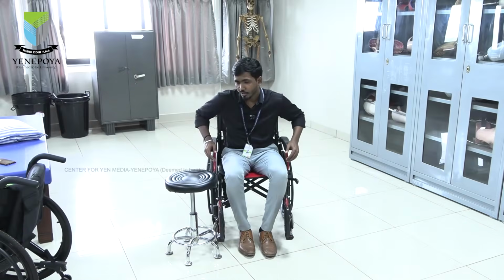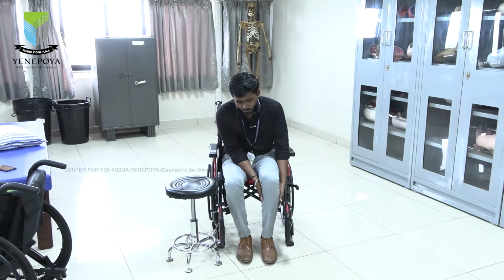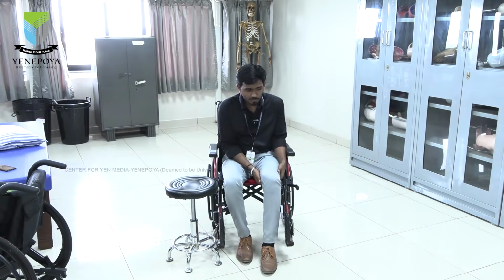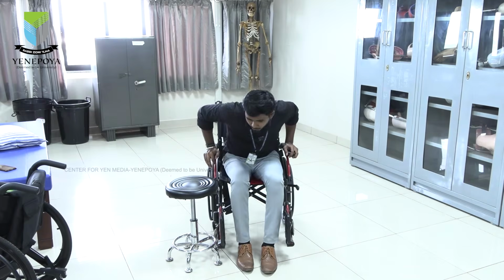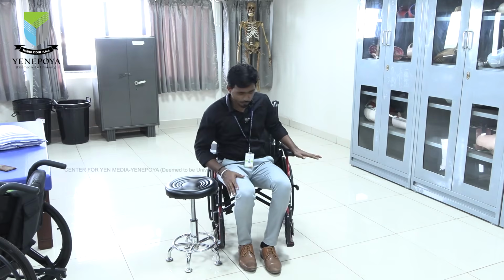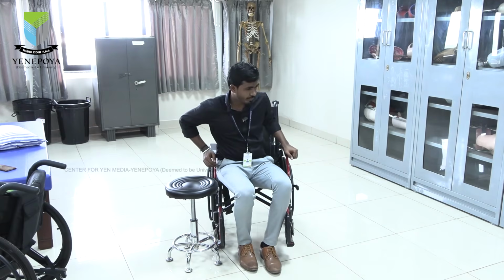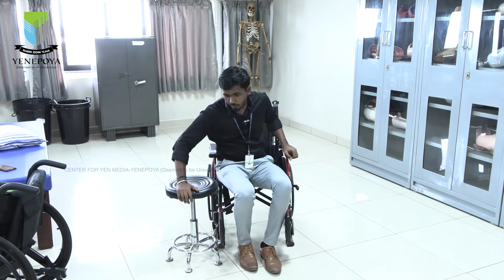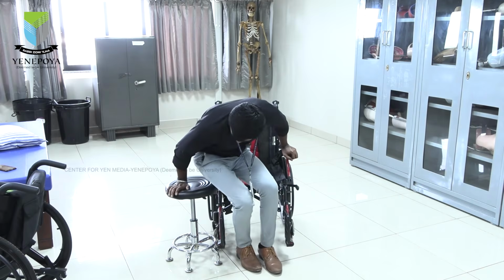So now I am going to demonstrate how we can transfer from wheelchair to chair, because the person cannot sit for so long by themselves. Okay. The person has to move the leg with their hands, and they have to move again. Then they have to come a little bit closer. In this whole thing I am not using any power of my lower limb, only the upper limb. Afterwards, one hand should be on the wheelchair and the opposite one should go on the chair. I will give pressure, then I will move my whole body and sit in the chair.